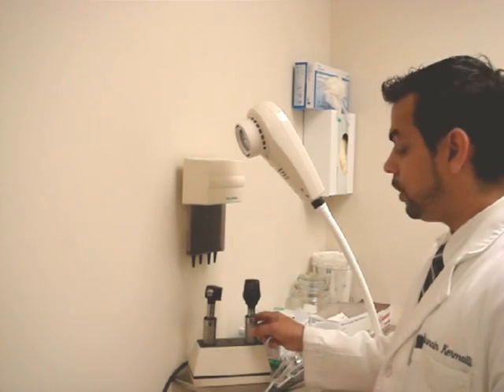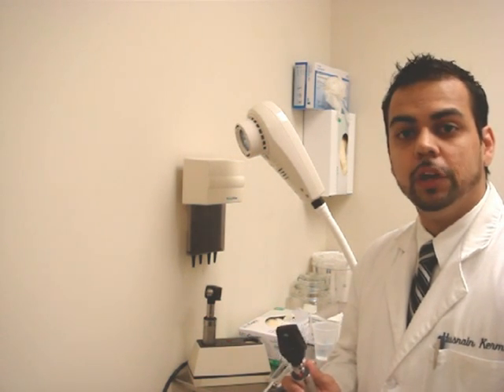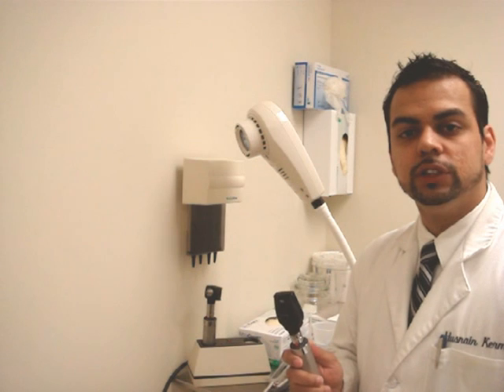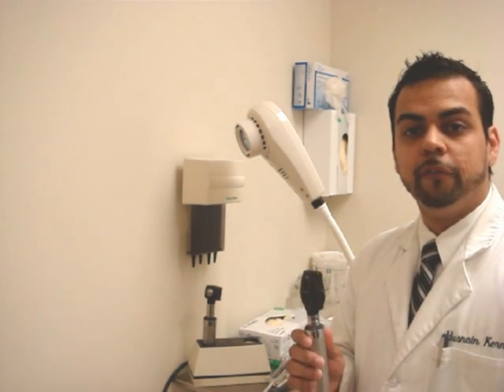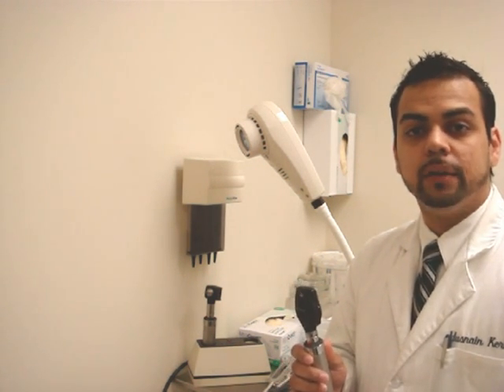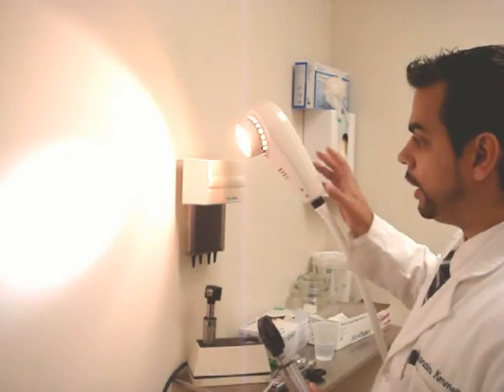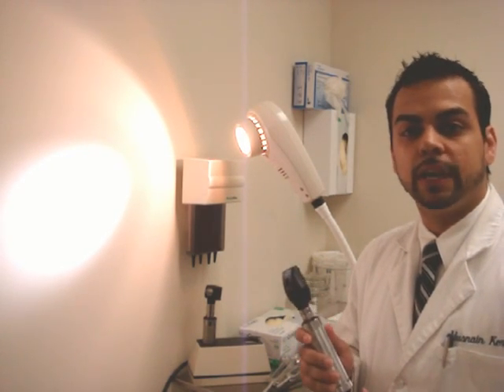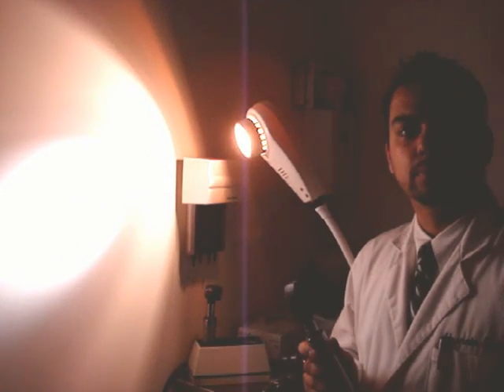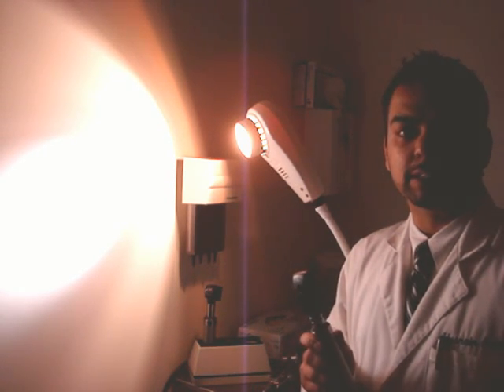The ophthalmoscope is the other tool used particularly during the eye exam. The first step in using the ophthalmoscope is, in fact, room lighting. Before proceeding, turn on another source of light and then turn off the main lights within the room. Doing so will allow you to use the ophthalmoscope at its best.